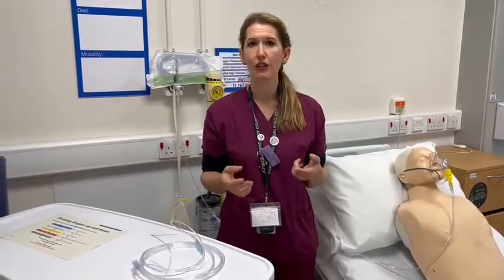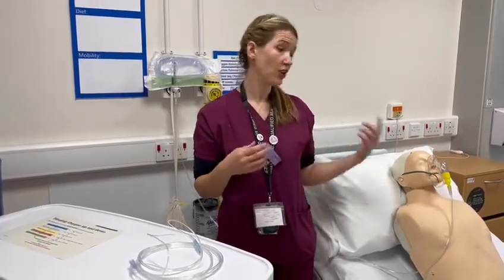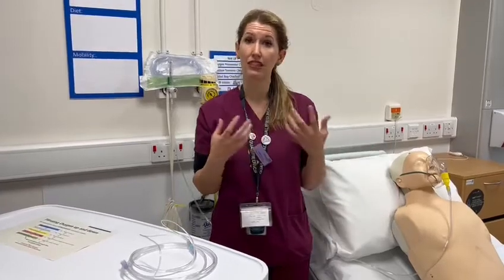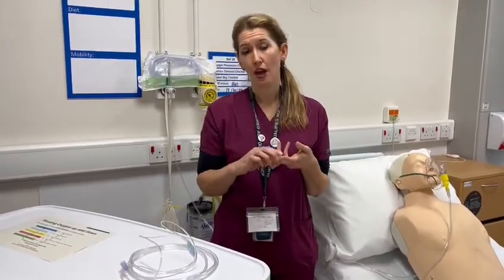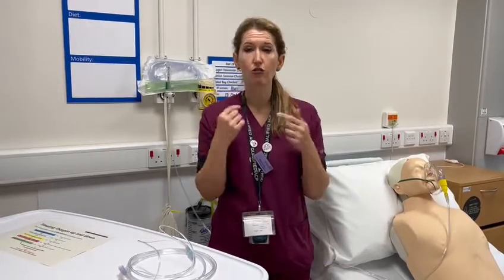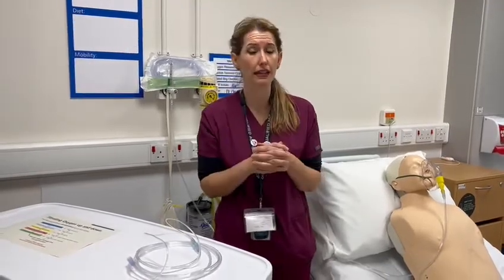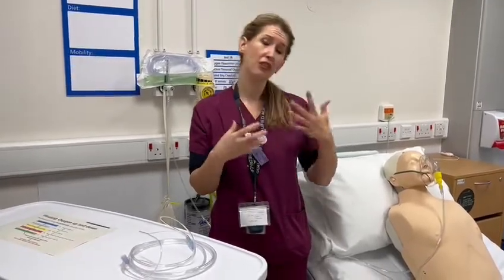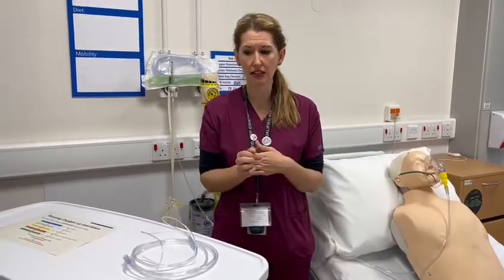Now the reasons that you might need to consider doing this is when your patient needs to eat and drink throughout the day, so you don't want to leave them without oxygen because they obviously need oxygen. If they're using nebulizers, then you can also entrain oxygen through nasal cannula, and also it's an alternative if your patient can't tolerate it, such as they get really claustrophobic. And so those are kind of the conditions that we would be mainly thinking about. Do we need to switch our patient to nasal cannula?